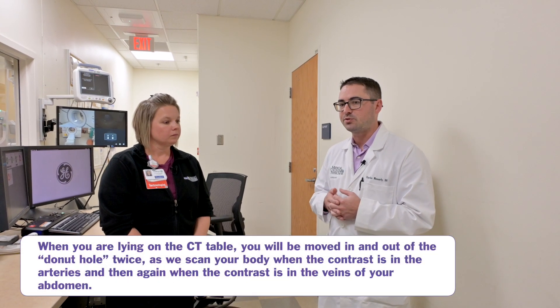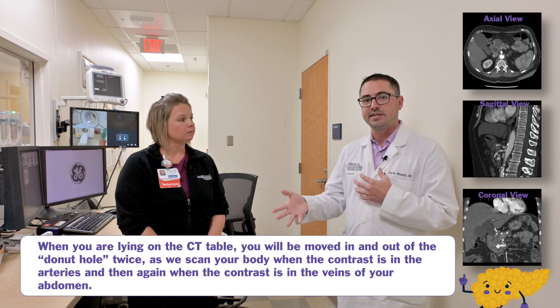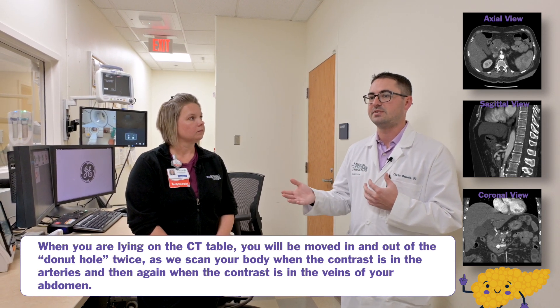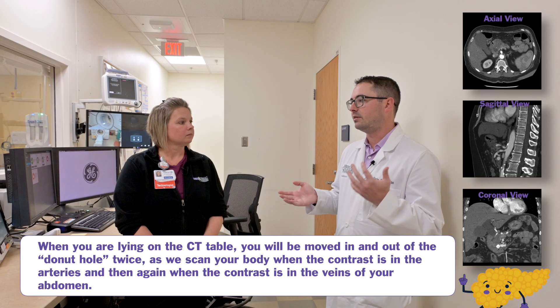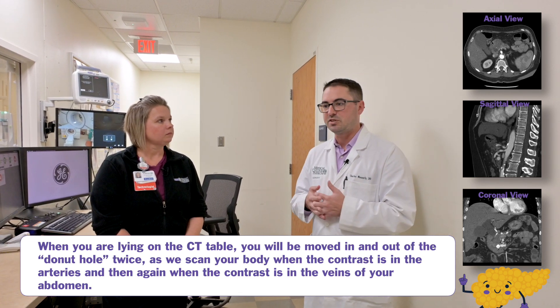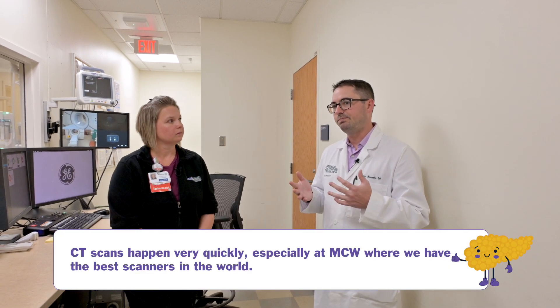Another thing with contrast, particularly for pancreatic cancer patients, is that we utilize dual-phase imaging — the patient goes into the scanner at two different time points. That's to simulate the heart pumping blood through the system: we want to identify the arteries first and then the veins, as contrast moves through those systems at different times, which is why we image at two different time points. Unlike MRI, the scan time itself is much quicker — anywhere from 45 seconds to a minute and a half total scanning time. We typically standardize imaging with a breath hold, which can be guided by the technologist from the control room.